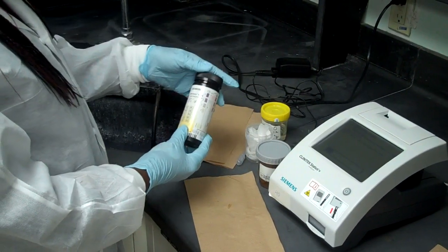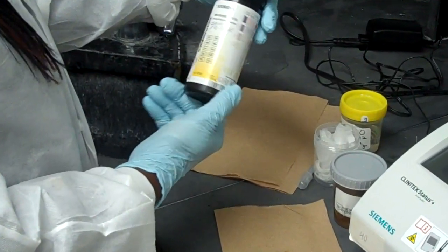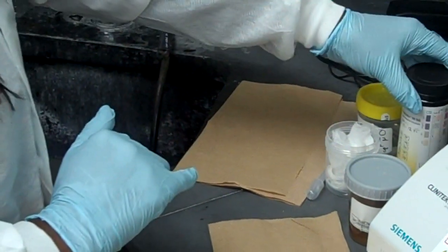Also, we look at the multisticks we're using. Make sure that the date, make sure that it has not expired. And make sure that on the bottle we have the open date as well.